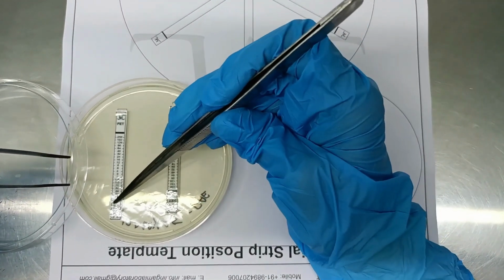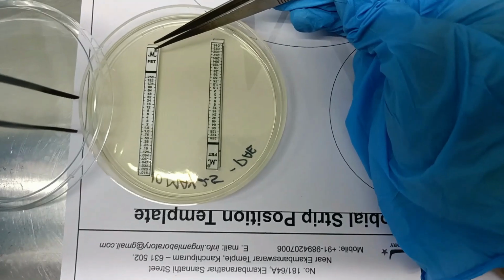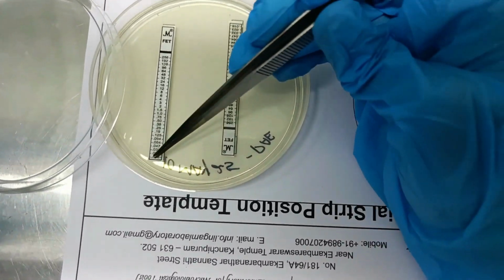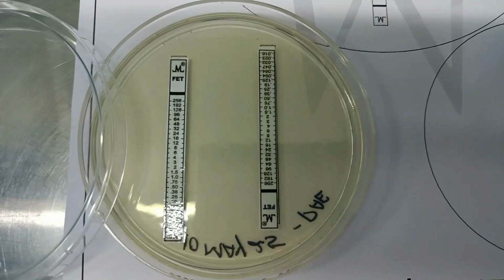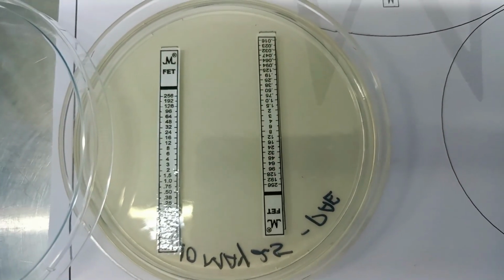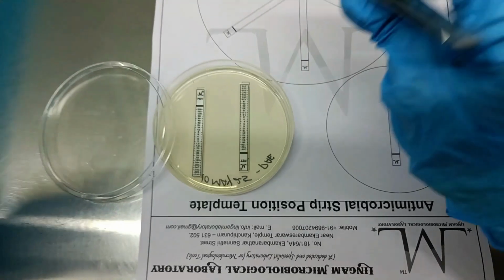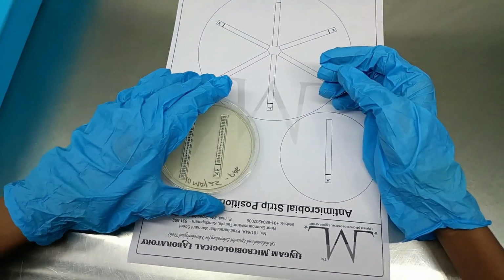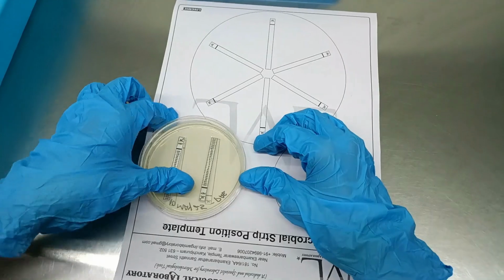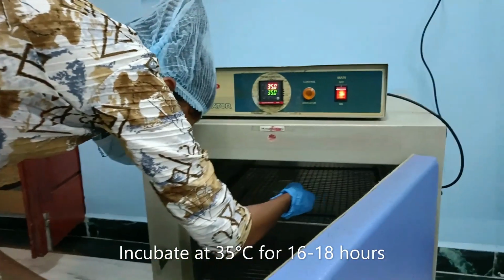Do not move the strip once it touches the medium, even if placed at the wrong position. The antimicrobial immediately starts diffusing at the point of contact, and repositioning it will distort the results. Incubate the plate inverted at 35 degrees Celsius for 16 to 18 hours.